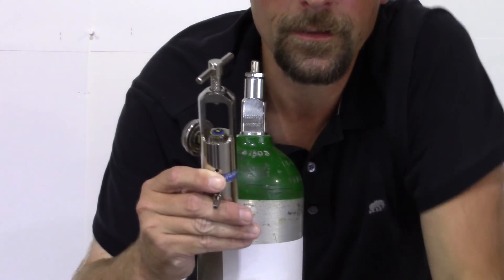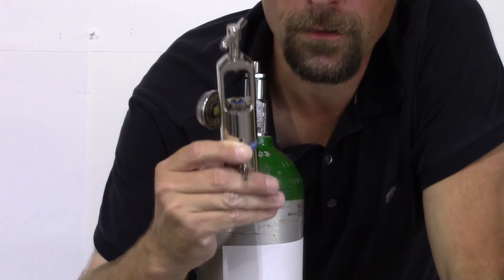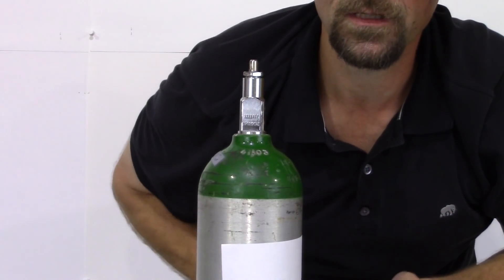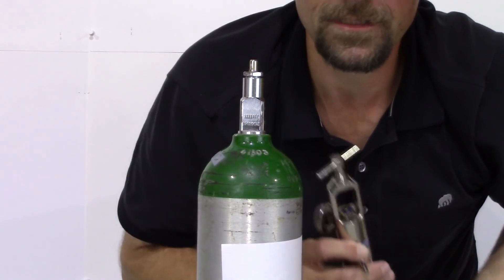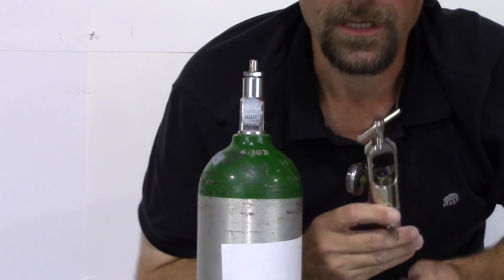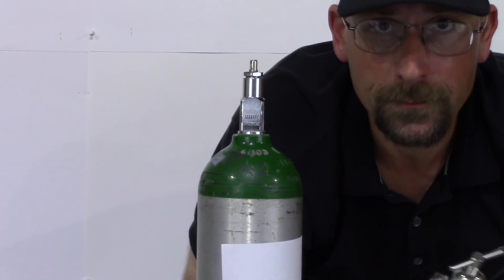Occasionally, these will go bad. Sometimes it'll be a month, sometimes it'll be a year. It really depends on how much use you're getting on the tanks and how hard you are on them. I've got some people that can easily go a year between washers. But everybody learns with time. It takes time, but you'll get it.